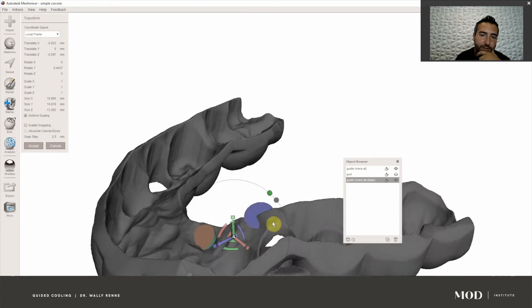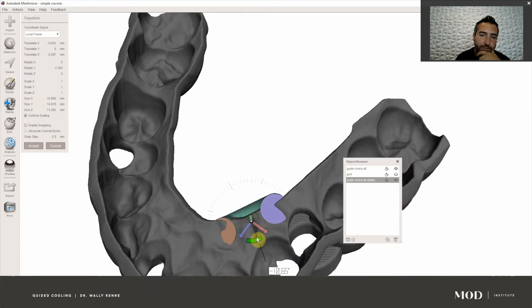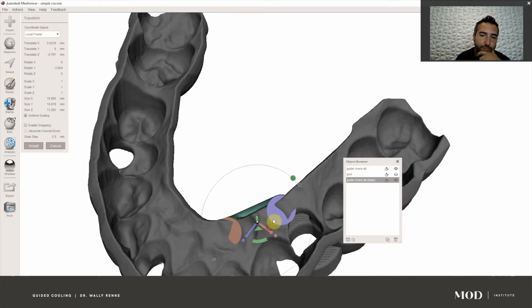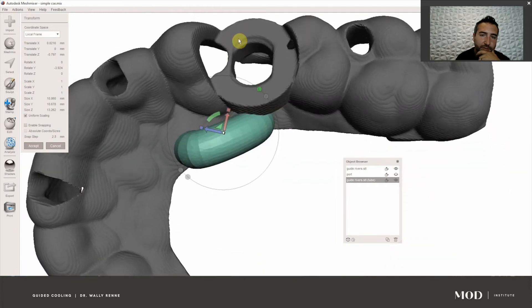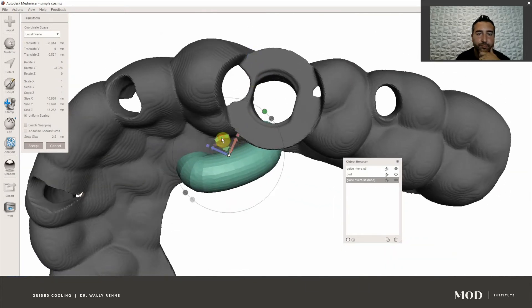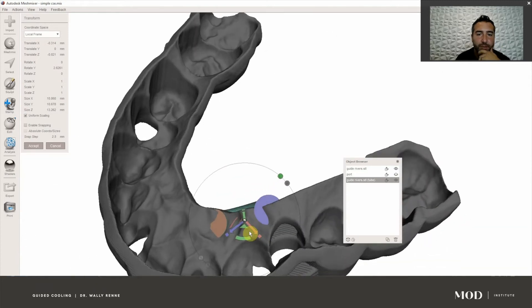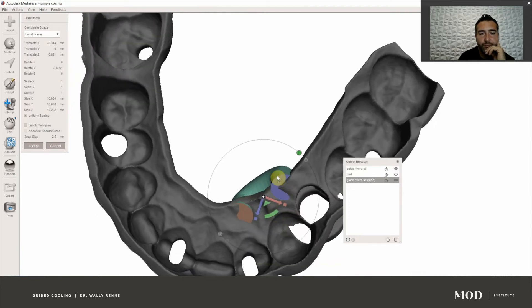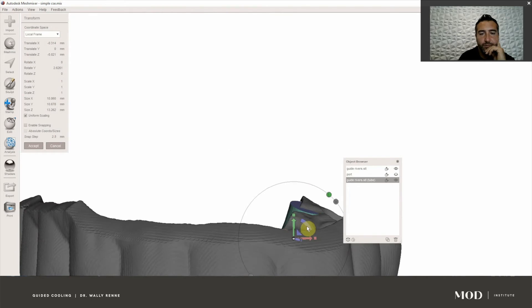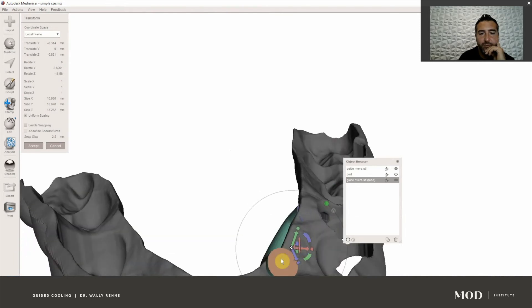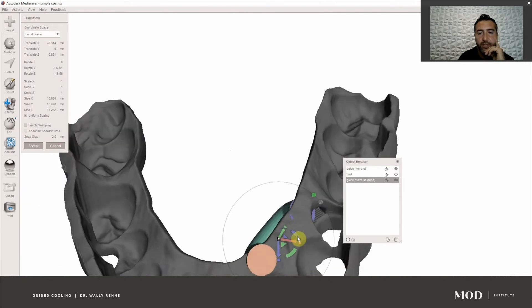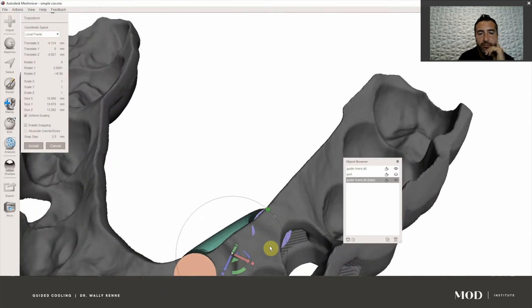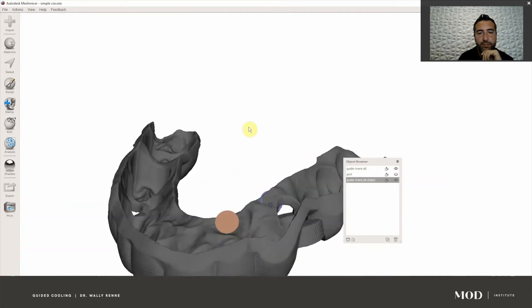Highlight the tube by clicking on it and hit T for Transform. Go ahead and move it ever so slightly — it's easier to move after it's been kind of manufactured, trust me. Get it right where you want it where it's not going to interfere with anything. I'm going to change the angle — I'm more worried about this end right here, I want that one to be nice. Hit Accept when you have it positioned where you want it.